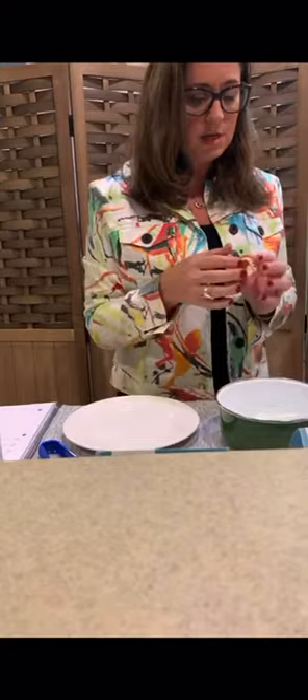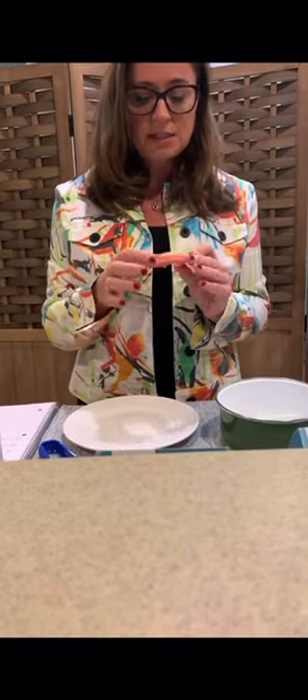It comes in two sizes: small/medium and medium large. This denture can be done with boiling water. Yep, you heard that. We're going to transform this stiff product with a gummy base into an incredibly pliable, easy to seat, full denture.